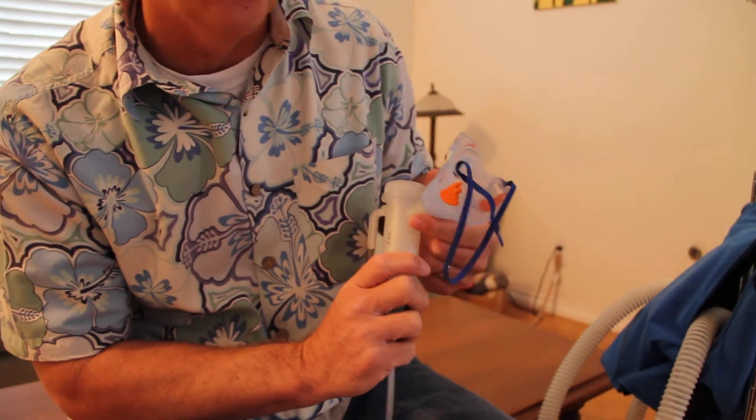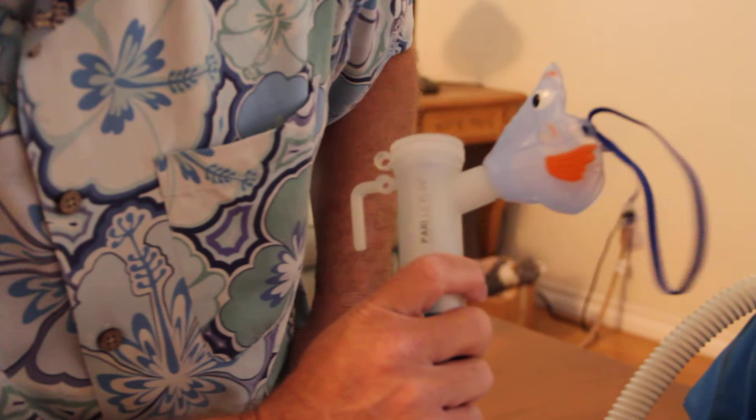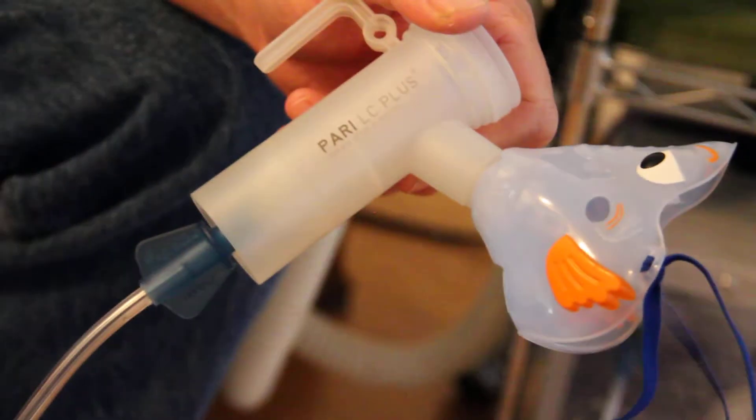So what I'm looking for is: what should I set my liter flows per minute for TOBI, Pulmozyme, and Cayston? My best guess right now is eight and a half to nine liters per minute. I'm using the PARI LC Plus cup with bubbles and the fish mask. That is my question — thank you so much. You can put comments on the video or I've emailed this to you. Thanks again for your help.